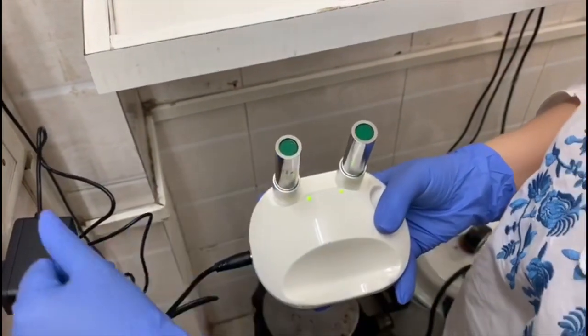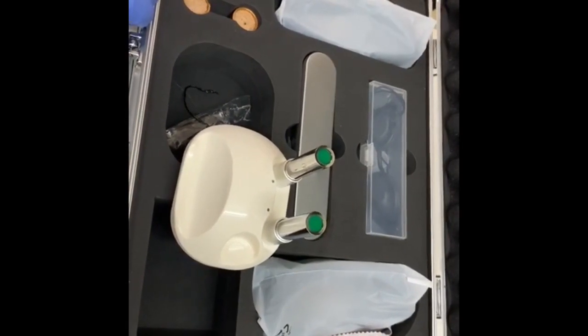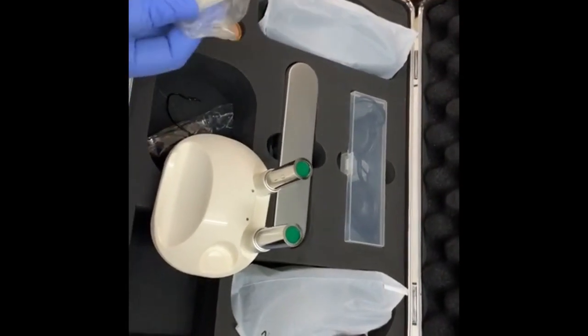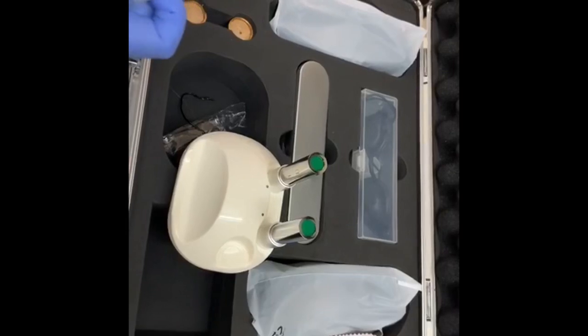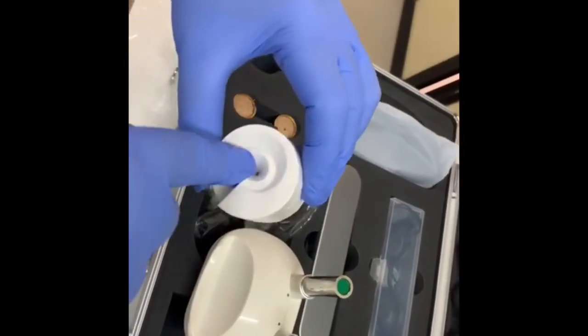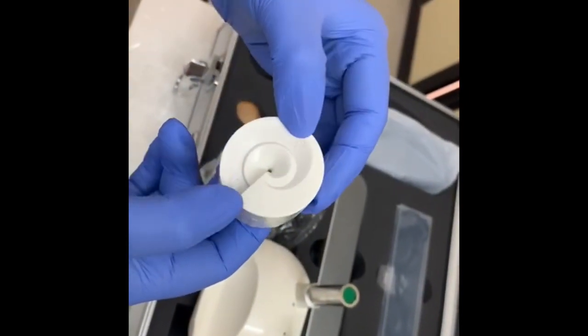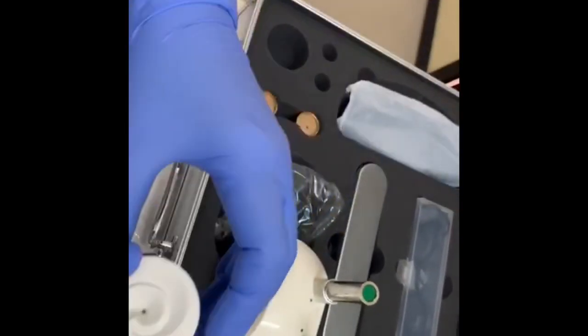We can use these batteries in our laser pen. So this is your tip. This is your tip bending tool. You need to place your tip here and then you need to bend it according to the degree, 90 or 60 or 30 degree.